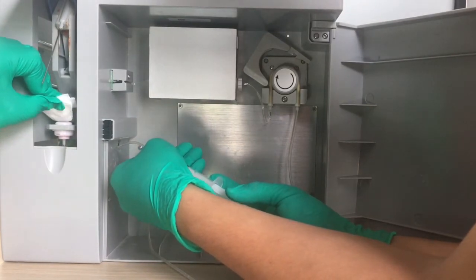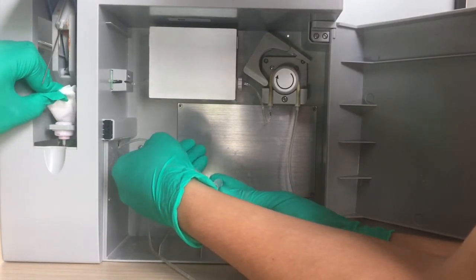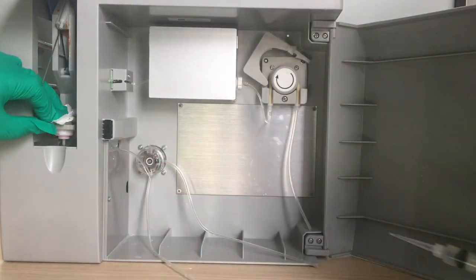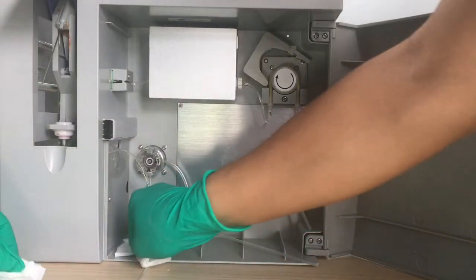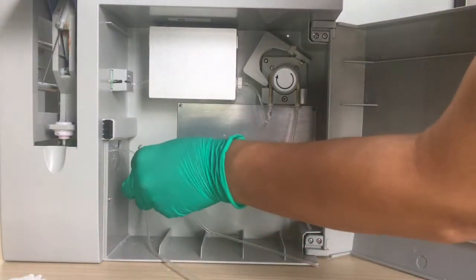Then we inject water. The water will come out from the connector. We use tissue to clean the water.